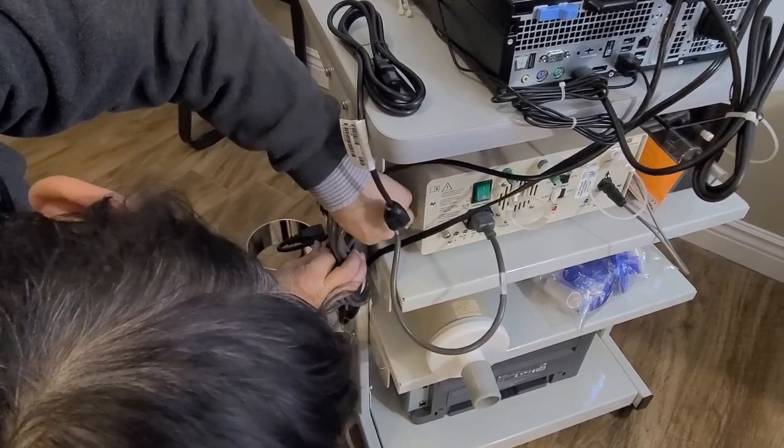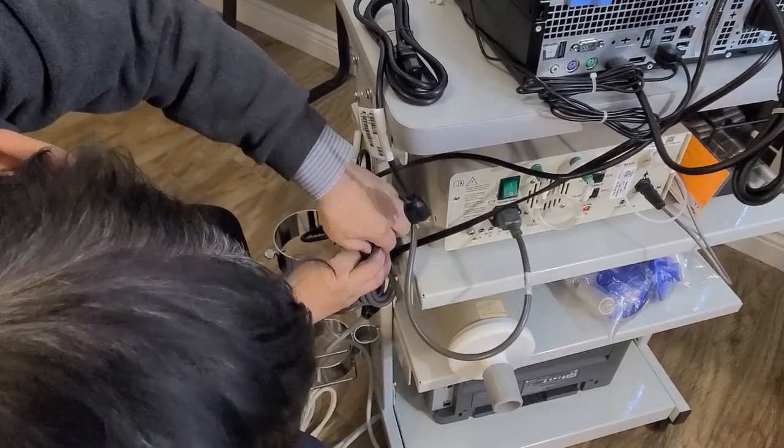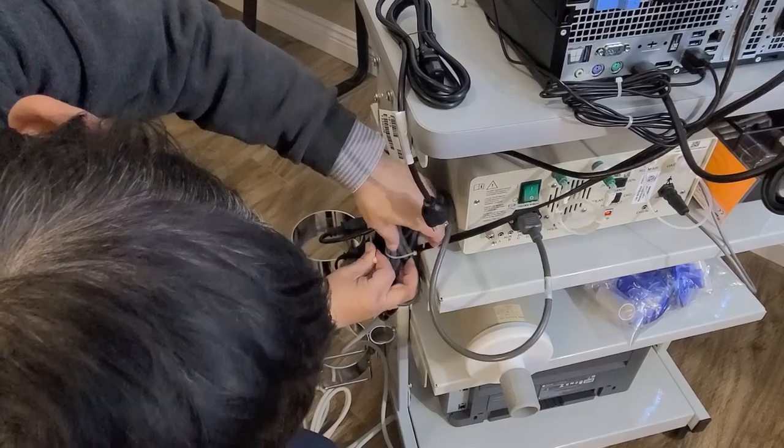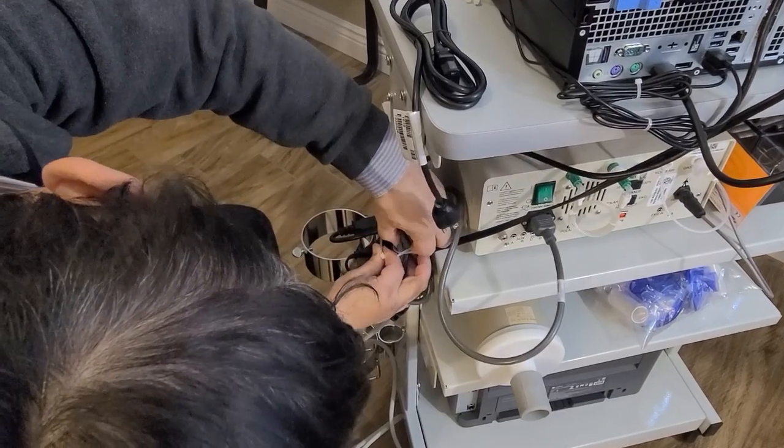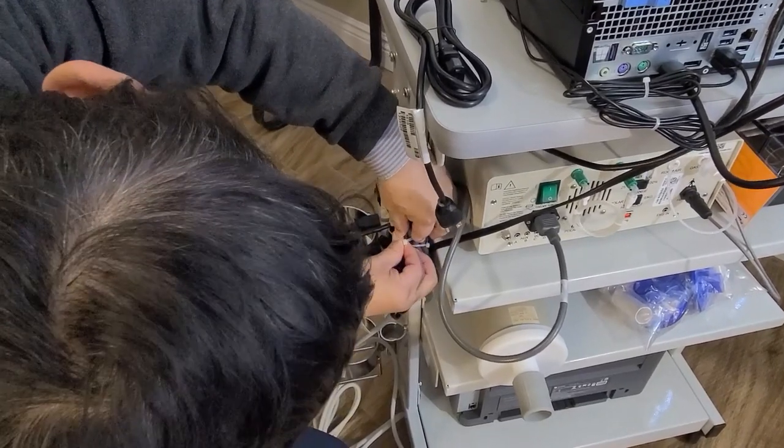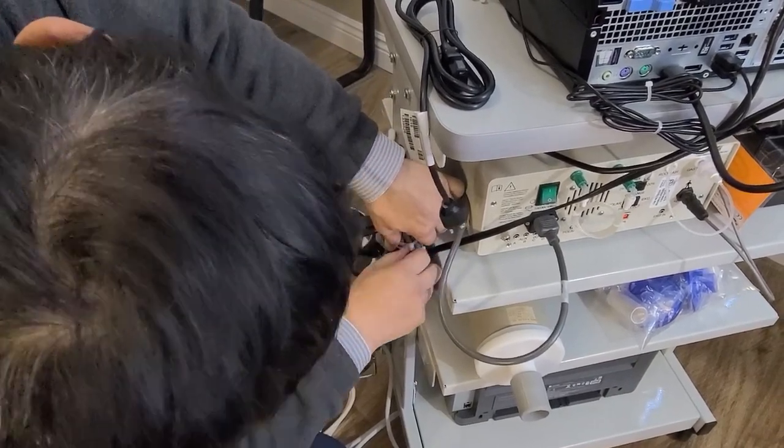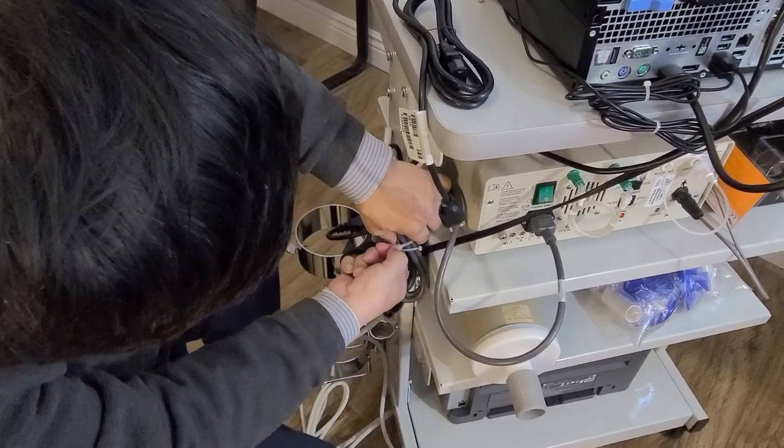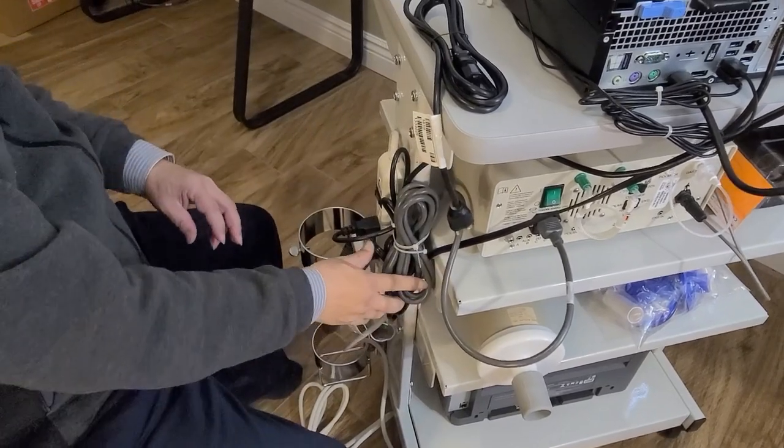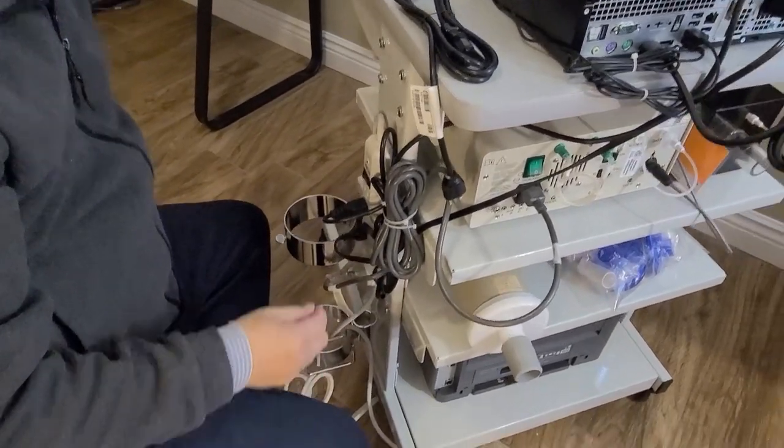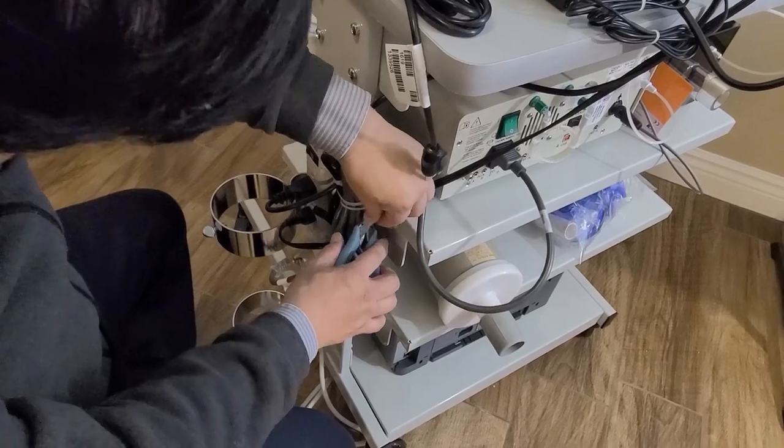Which zip tie is that? This is the first zip tie, the biggest one. And again, tie it nicely.